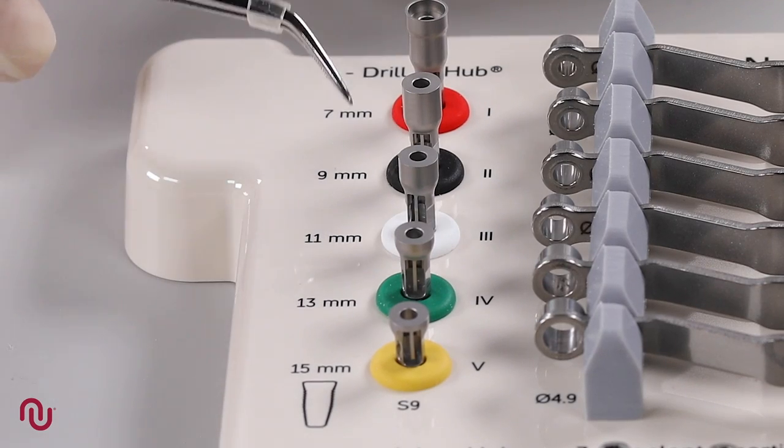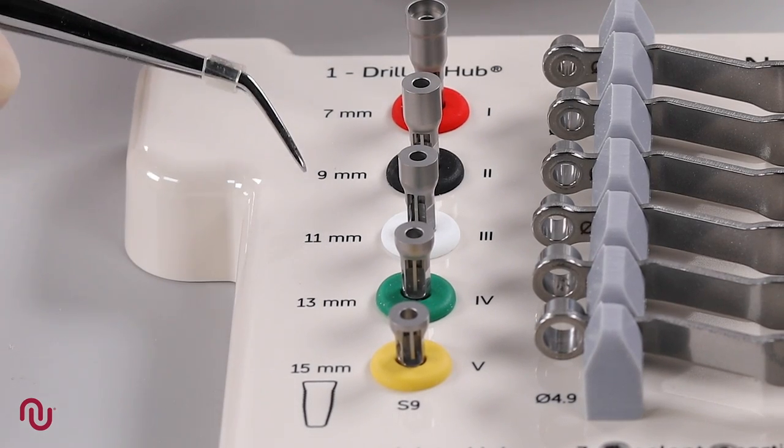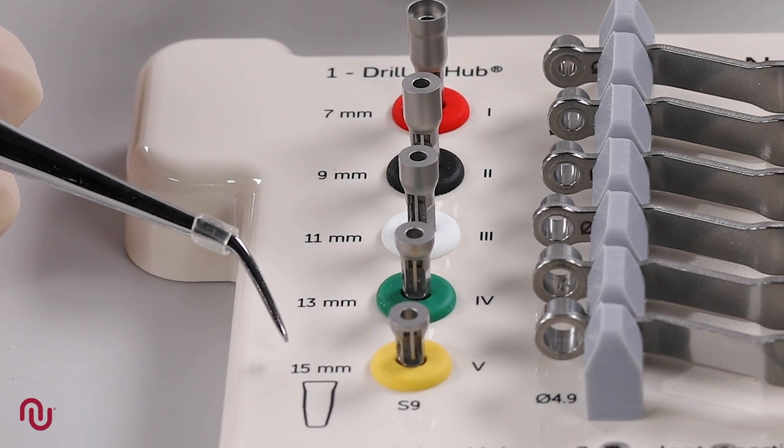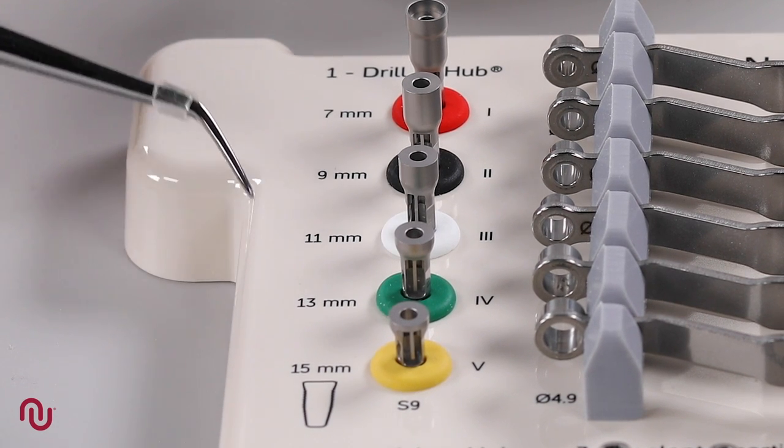Select the correct drill hub based on the implant length according to the Neos guide tray. Note that the same drill hub is used for all steps per specific preparation site.